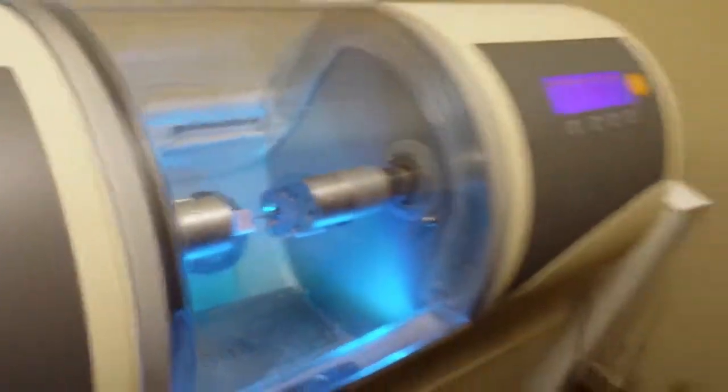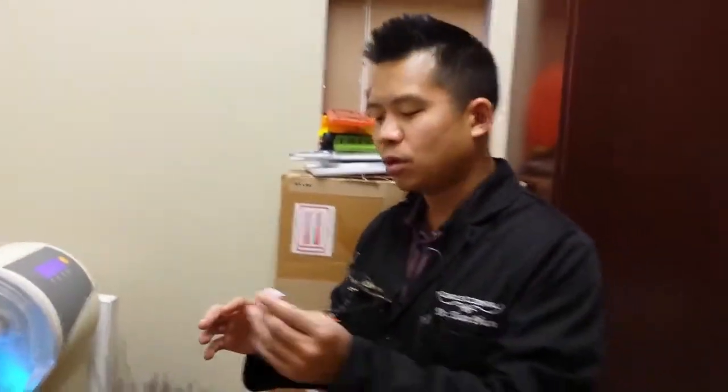I believe it raises the temperature to, I think, 1,200 degrees Fahrenheit. And it makes the porcelain change from purple to tooth colored. And then it's very, very hard. It's designed for grinders. And that's what I have in my mouth, too.